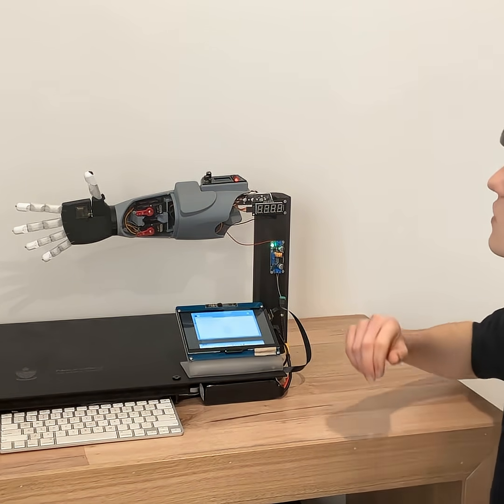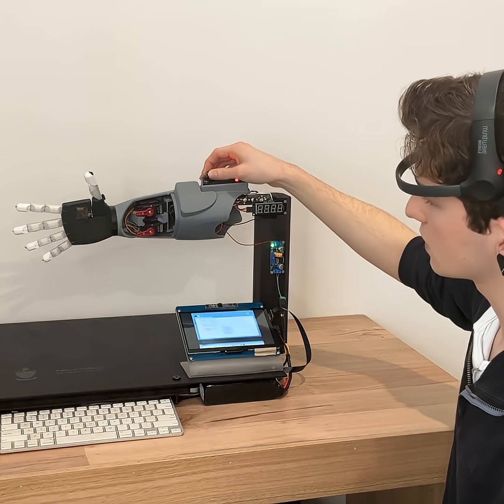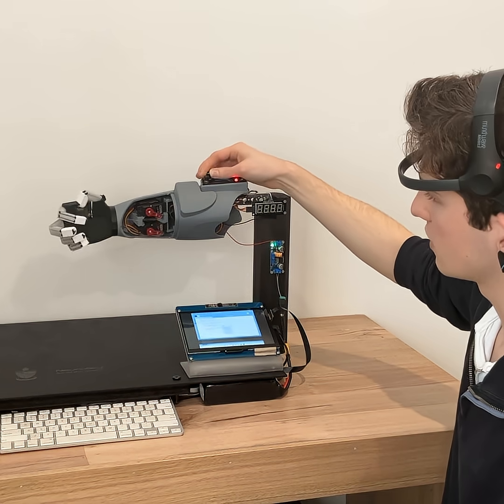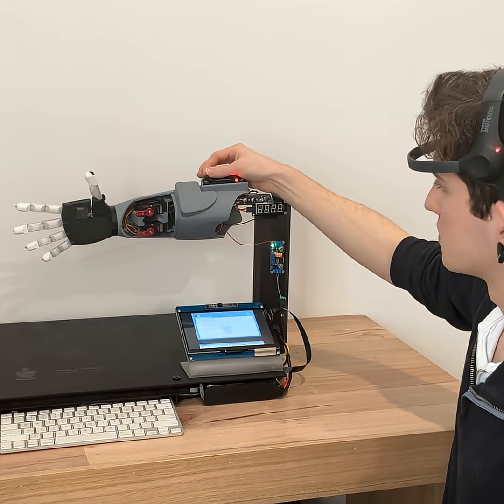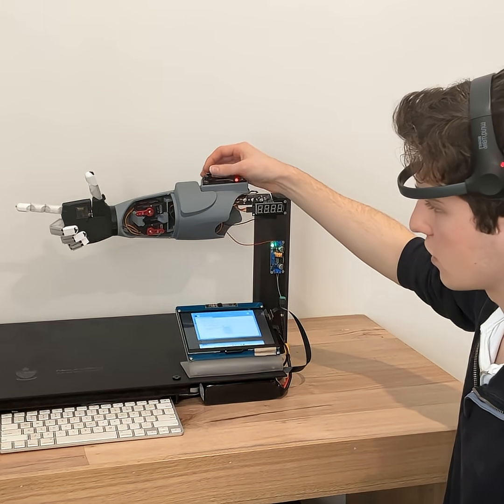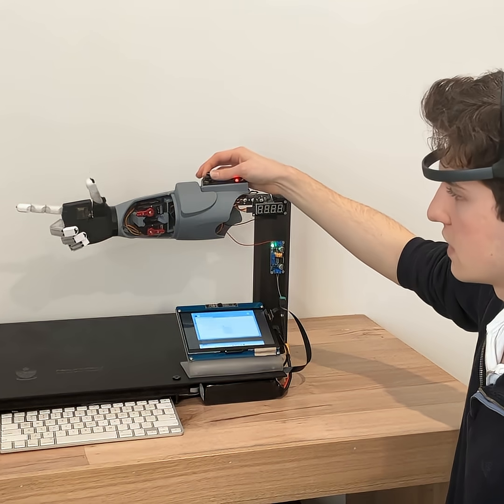I'll show you some of the other functions it's got. So right now it's in mode one, but if I move to mode two it's just manual control of the grip strength, so I can turn the potentiometer on the arm and open and close it like that. As well as mode three where I can close these three fingers and control the thumb joint like this.